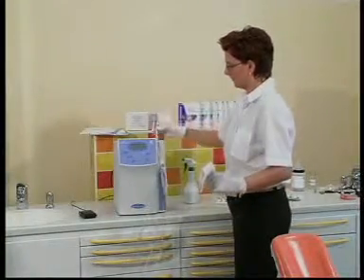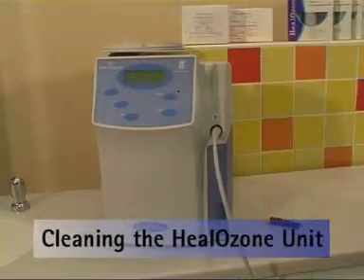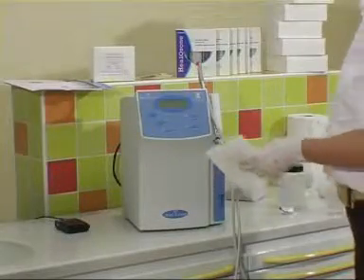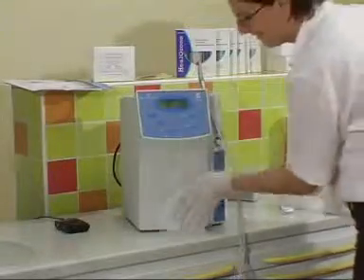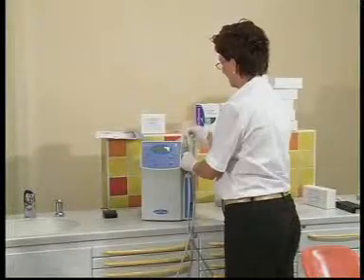You are now ready to treat your first patient. A few words of advice regarding the cleaning and maintenance of your new instrument: before cleaning the unit yourself, make sure that its main switch is off. Use an alcohol or disinfectant-impregnated wipe to disinfect the unit. To clean the unit, use a soft cloth impregnated with mild cleaning fluid.